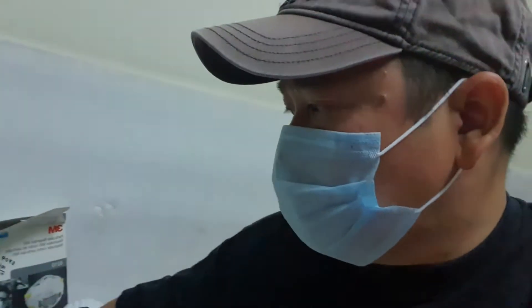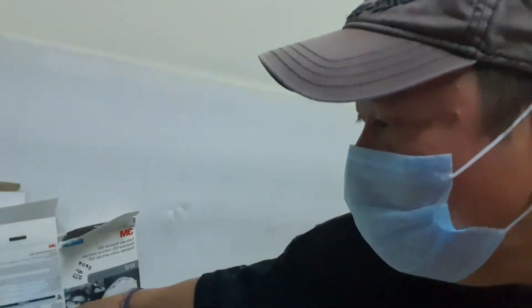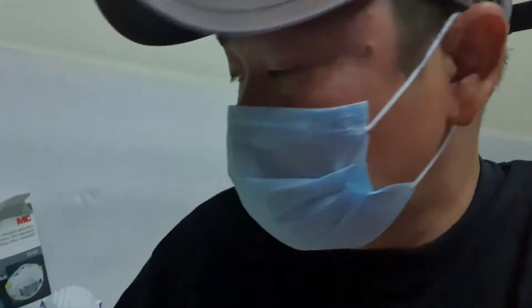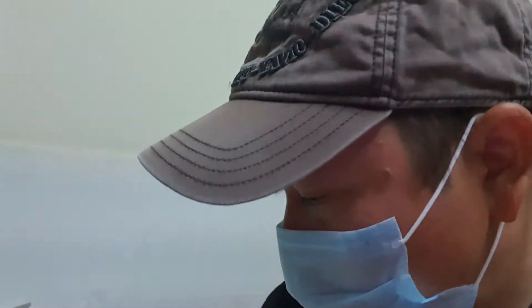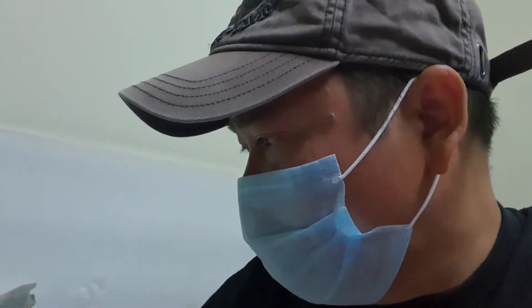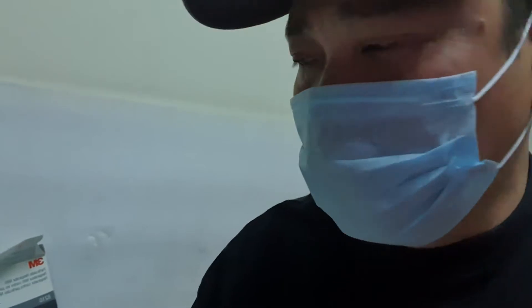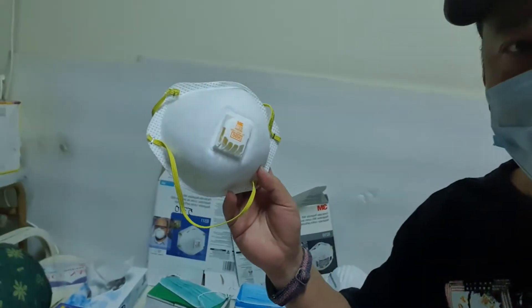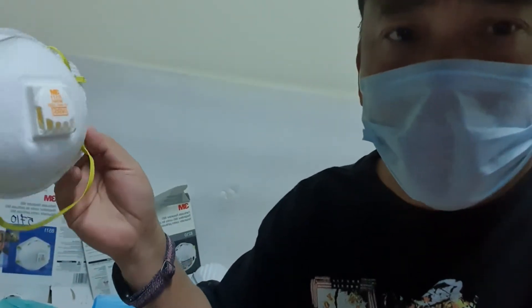The price range now is 39 to 59 riyals — imagine that — so around 300 to 600 pesos. So I will show you the technique on how to reuse this mask. It's not actually washable, but if you want to reuse it you can wash it.